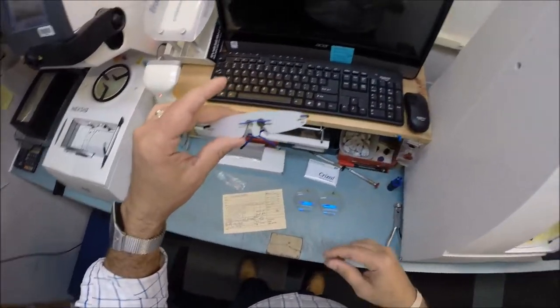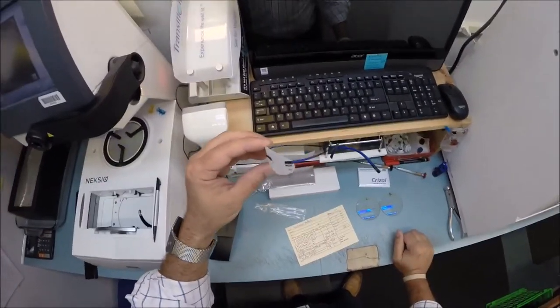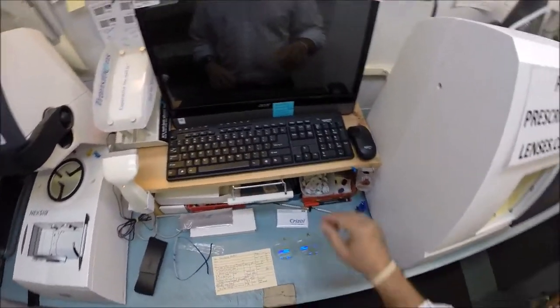I wear a lot of blue. I know everyone's saying another pair of blue glasses — that's what my wife is saying — but I tell her how many pairs of black shoes do you have, so that's why I need more than one pair of blue glasses.